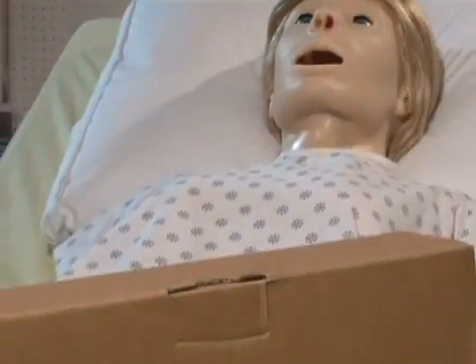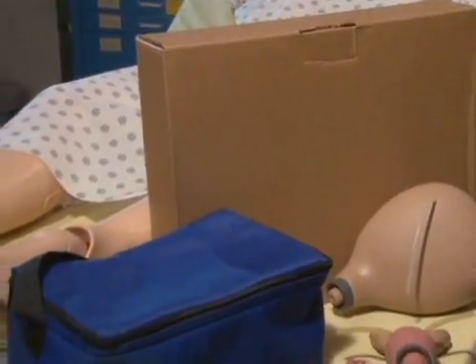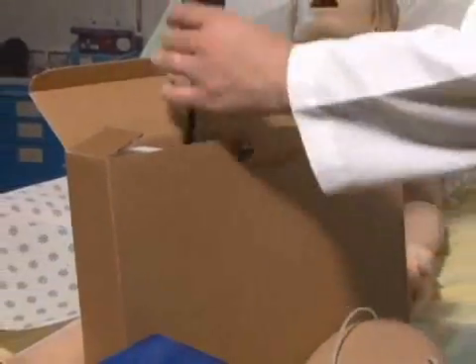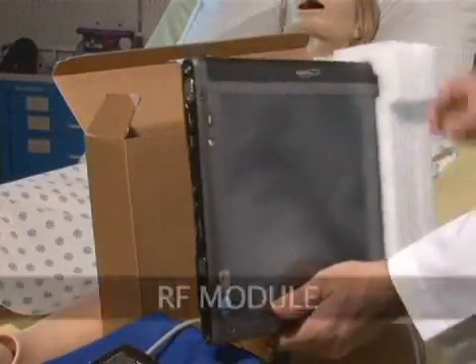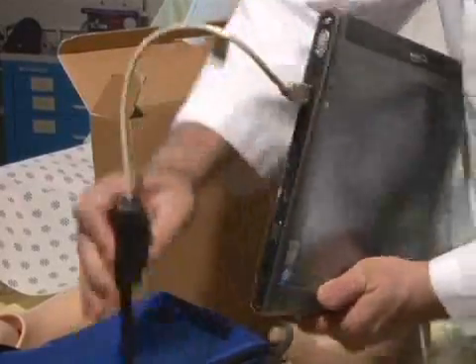The first task following the arrival of your new Suzy simulator is to ensure you have received all the equipment and accessories. Remove the tablet computer, which is packaged separately, and connect the RF module to either one of the USB ports on the left side of the tablet.